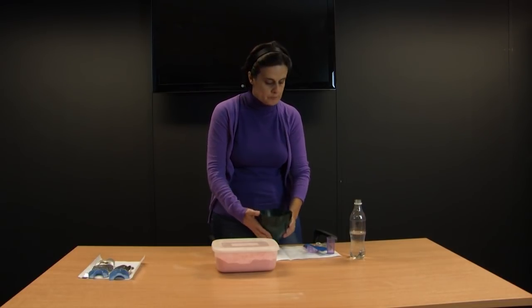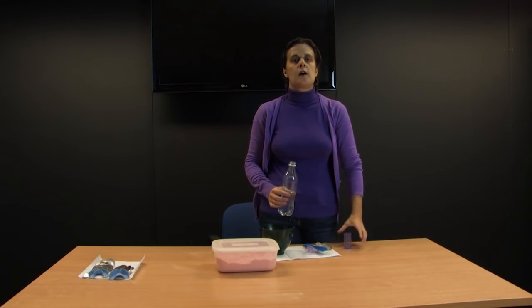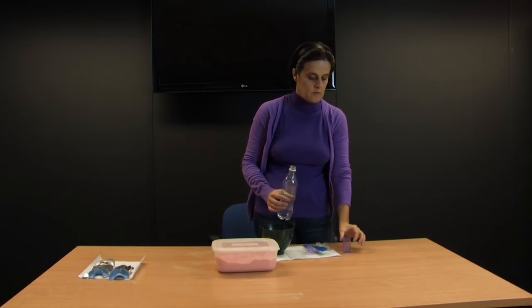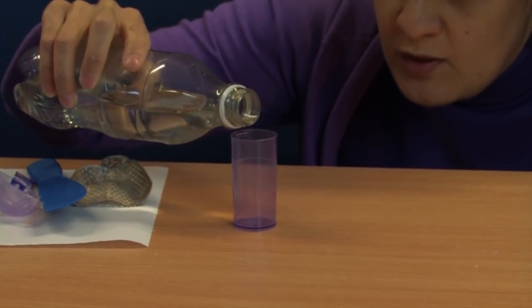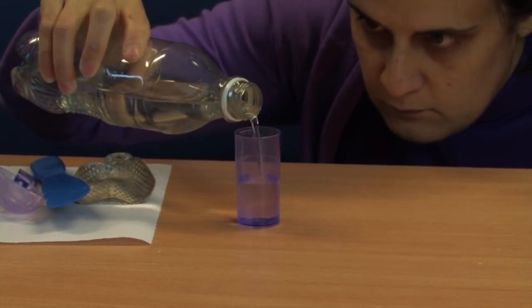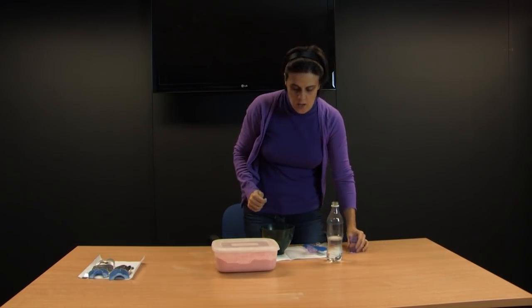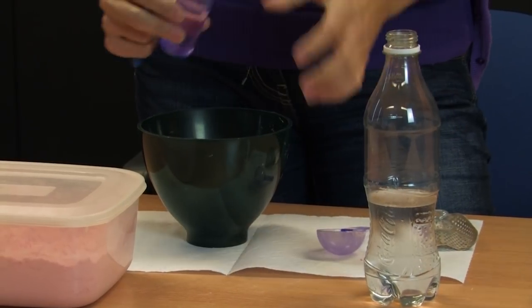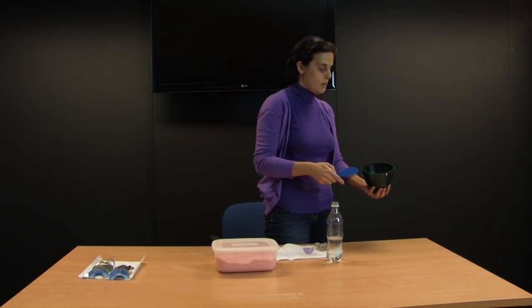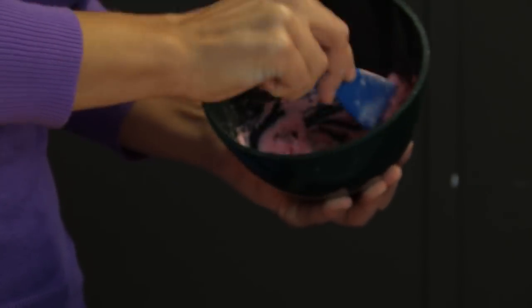Now I have my powder inside the bowl. I'm going to use two measures of water. When measuring the water, I make sure I'm measuring on a flat surface — I leave the measure on the table and kneel down to ensure the water level is exactly on the line. Please remember that you always put the powder in first and only then add the water to the powder. I add the water and, with the tip of my spatula, I begin to mix the water and powder until there is no dry powder left in the bowl.